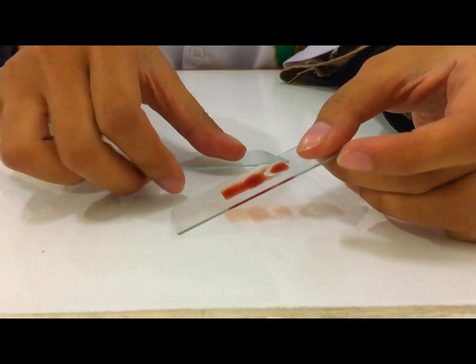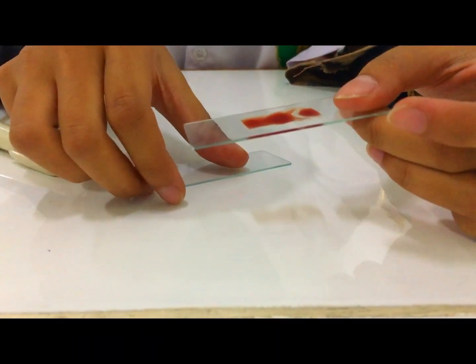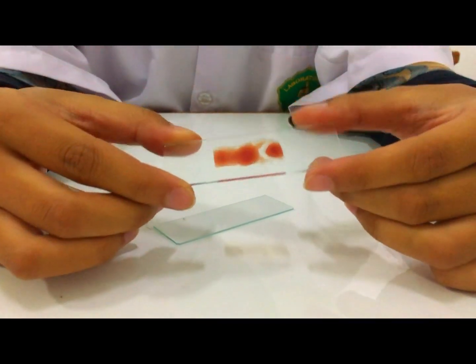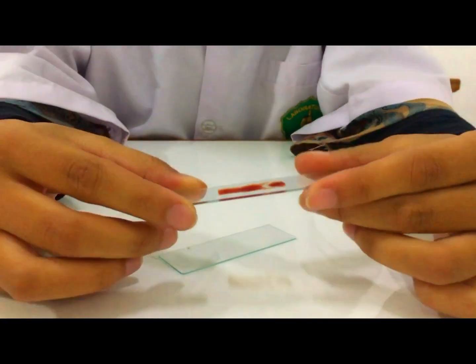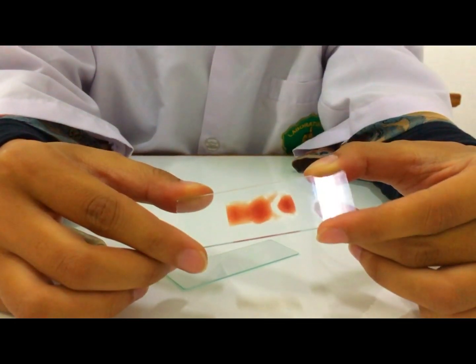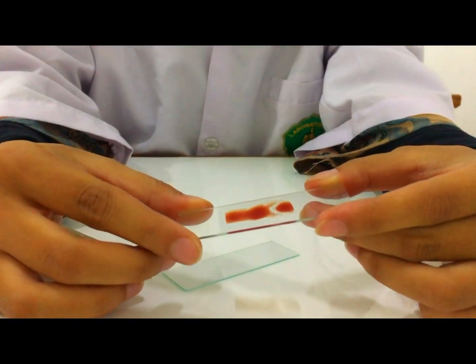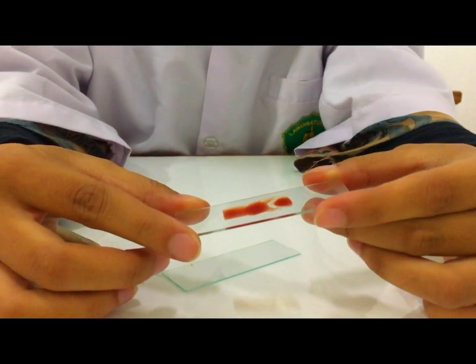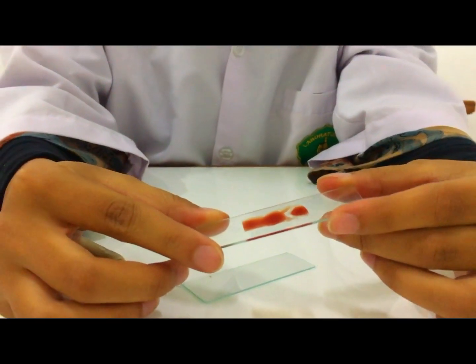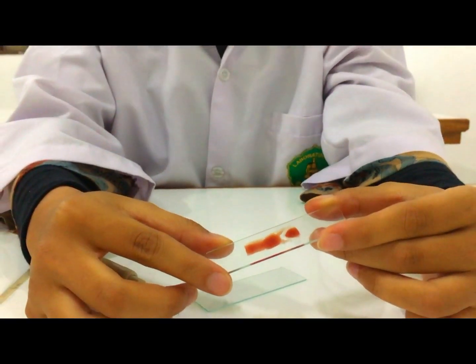Setelah tipis, tambahkan larutan Giemsa pada darah ini. Tunggu sampai 30 menit. Setelah itu, cuci dengan air keran. (Once thin, add Giemsa solution to the blood. Wait 30 minutes. After that, rinse with tap water.)